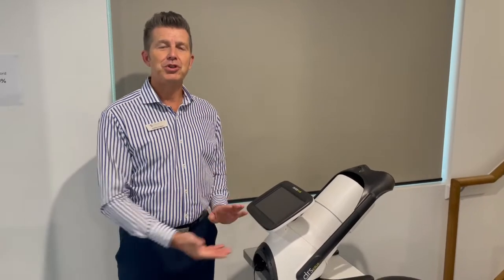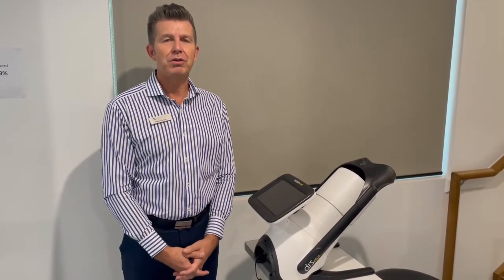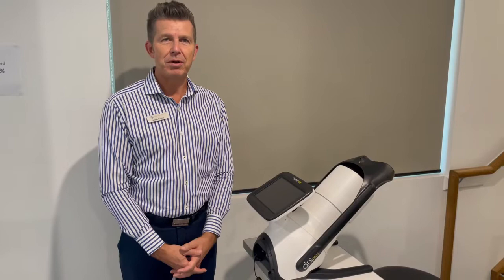Hello, my name is Andrew from Designs for Vision. I'd like to introduce the iCare DRS Plus Confocal Fundus Camera.